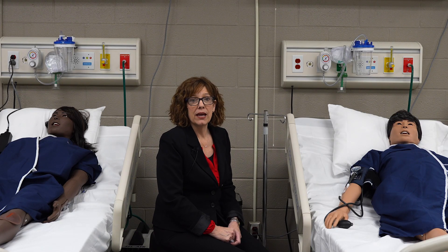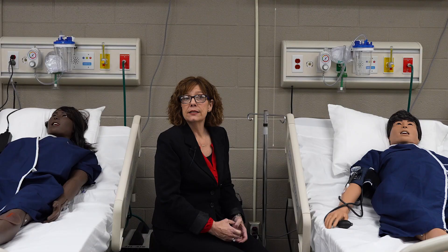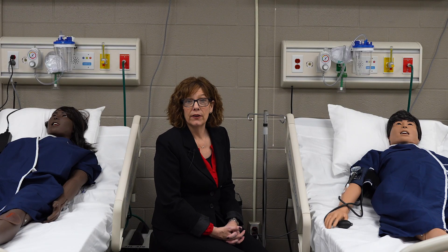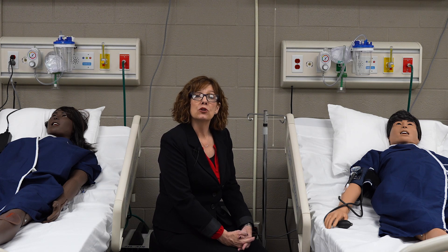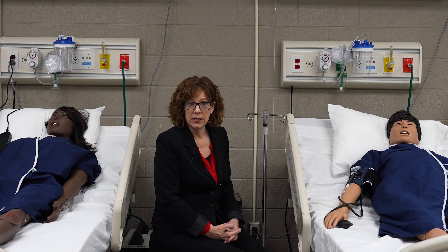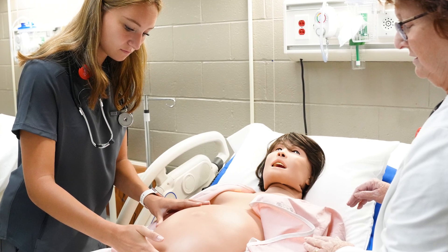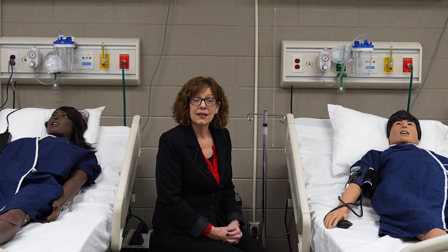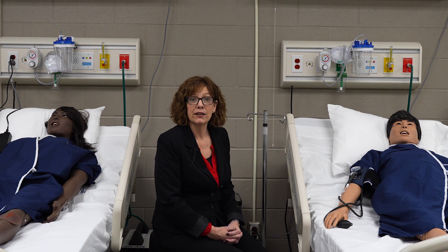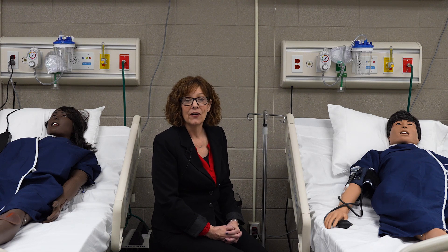The importance of simulation mannequins in learning, specifically in healthcare learning, is putting the whole picture together. Let's say students are learning about heart disease — maybe congestive heart failure. They can read about it, read about the multiple organs it affects, and read about what they should look for to determine how diseased the patient is. When they come into the simulation lab with their clinical instructor driving this work, they can take a look at these mannequins, hear congestive heart sounds, hear congested lungs, and feel pulses that are weaker because of extra fluid in the patient's body. All of those pieces let them put the learning objectives together prior to caring for someone with congestive heart failure in the hospital.